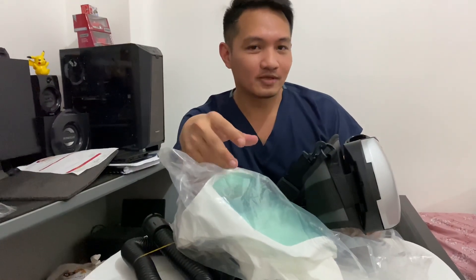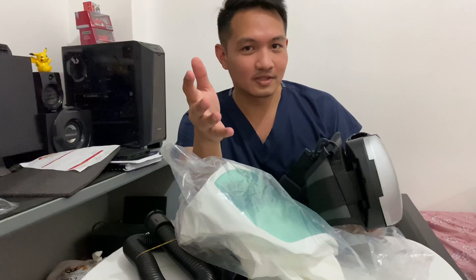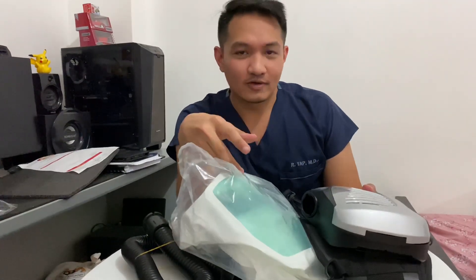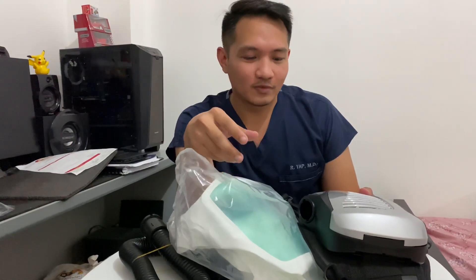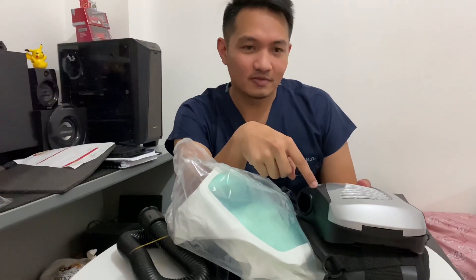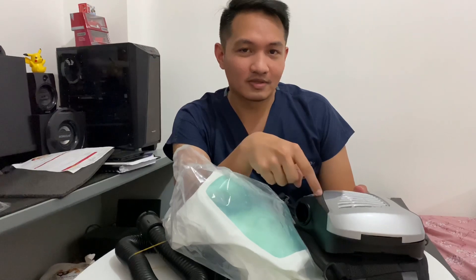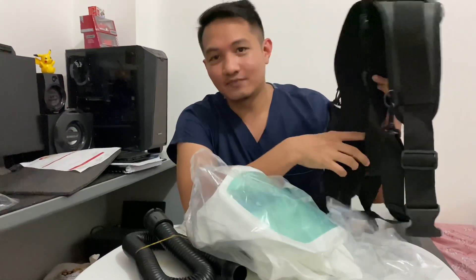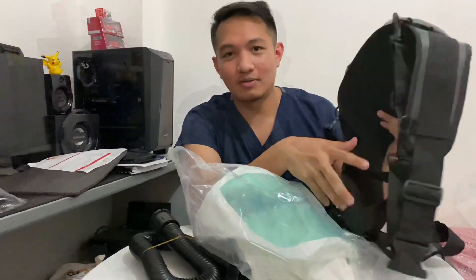But you can actually search in Google, especially on Alibaba. You can buy this at around 250 US dollars, but you have to buy in bulk — maybe a minimum of 10, if I remember correctly. But I haven't tried or I don't know what's the process of ordering online to Alibaba.